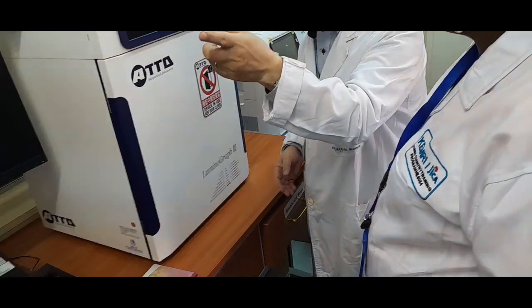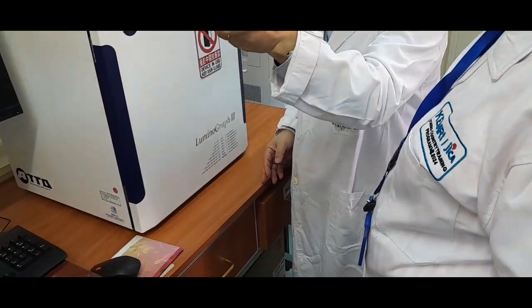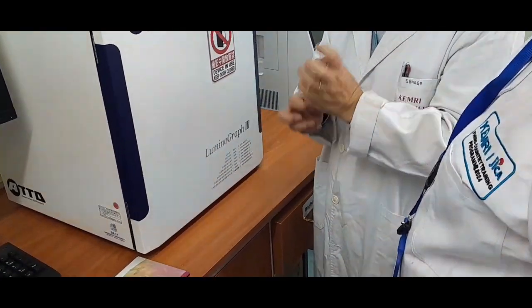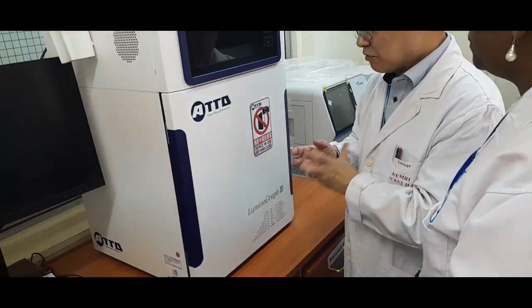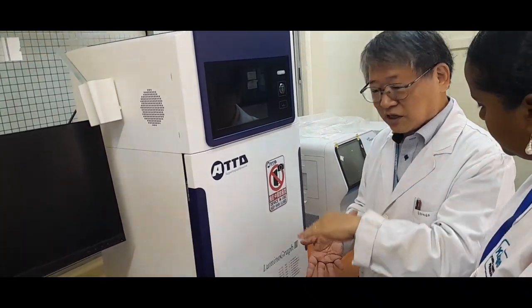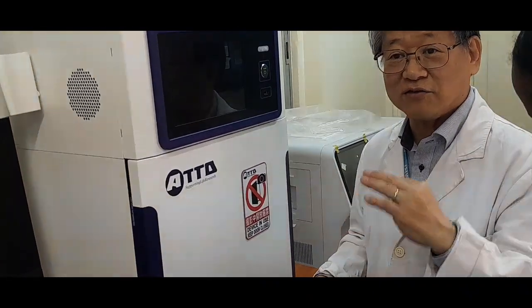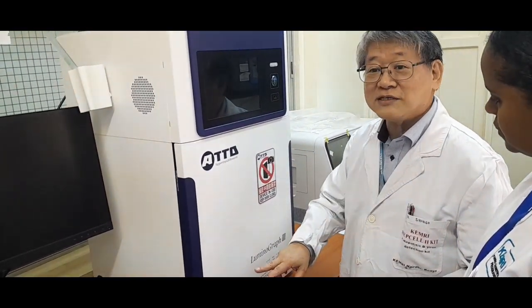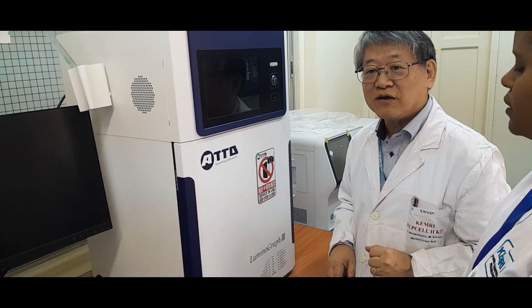Okay. Also the immunofluorescent antibody technique, but also we use chemiluminescence, so a chemical reaction. Using the chemical reaction, we will check how much the antigen exists or how much the antibody exists. We can monitor it, and this is more sensitive than other methods.